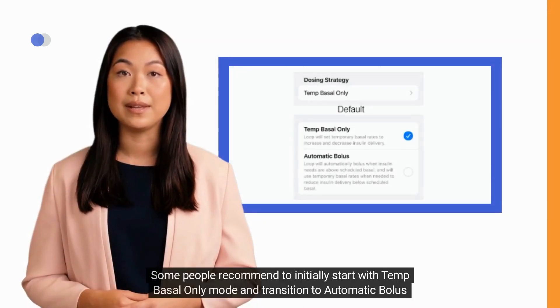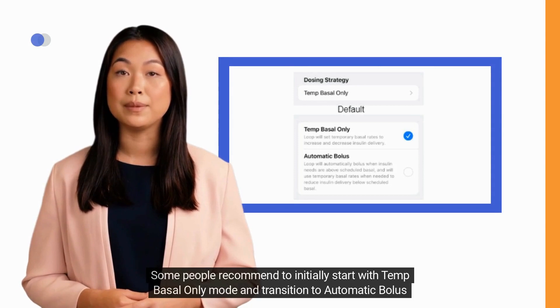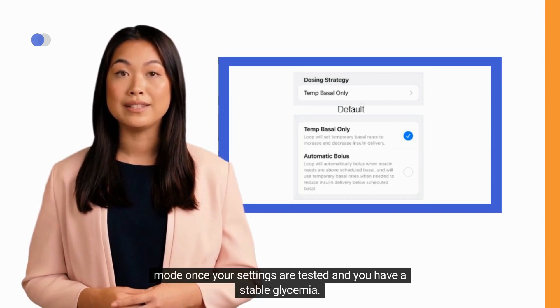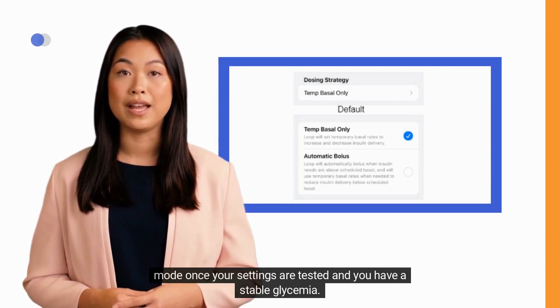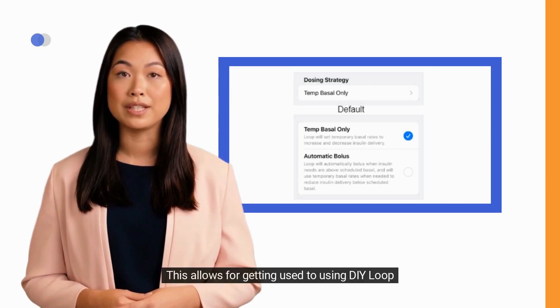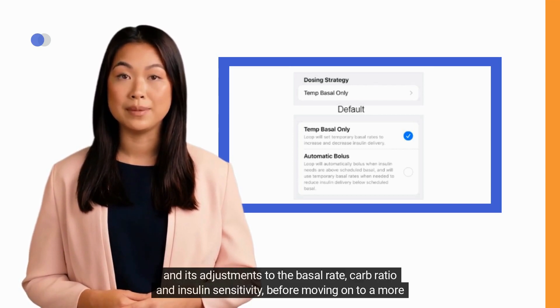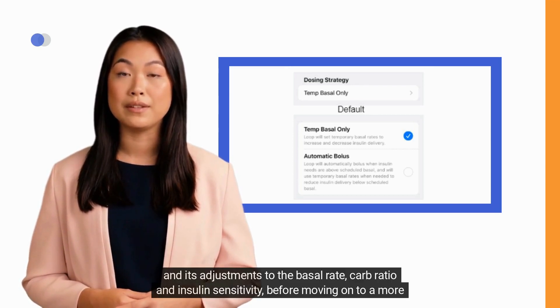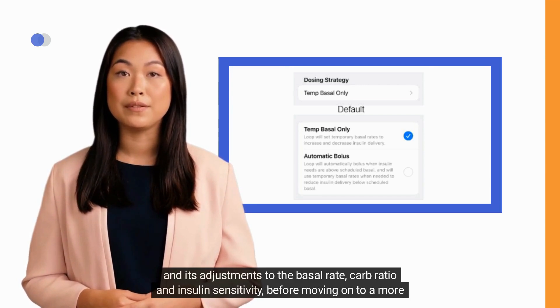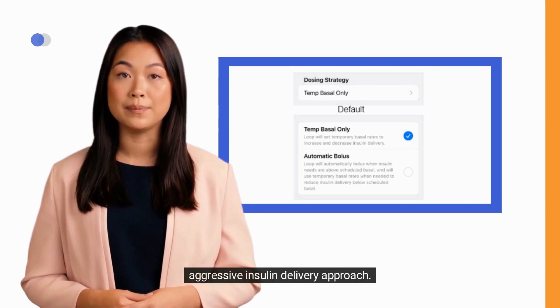Some people recommend initially starting with Temp Basal Only mode and transitioning to Automatic Bolus mode once settings are tested and glycemia is stable. This allows for getting used to DIY Loop and its adjustments to the basal rate, carb ratio, and insulin sensitivity before moving on to a more aggressive insulin delivery approach.